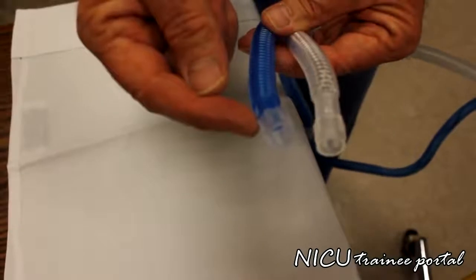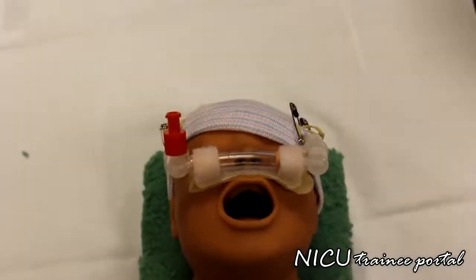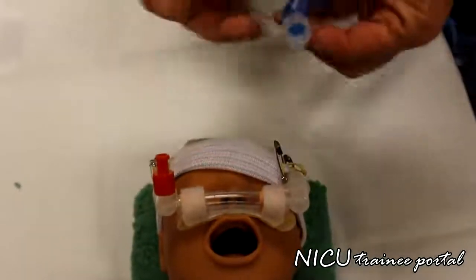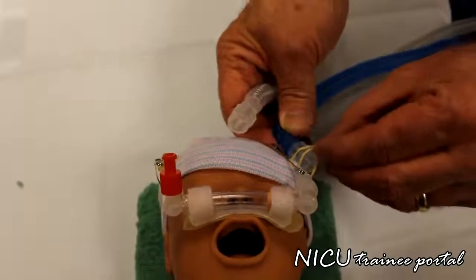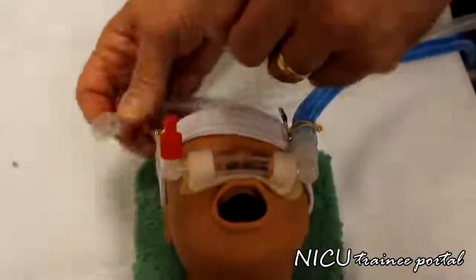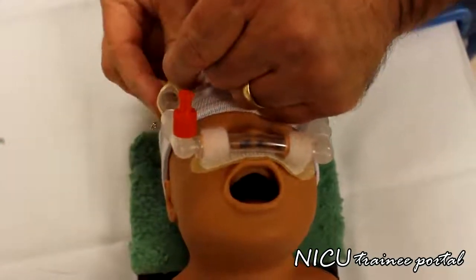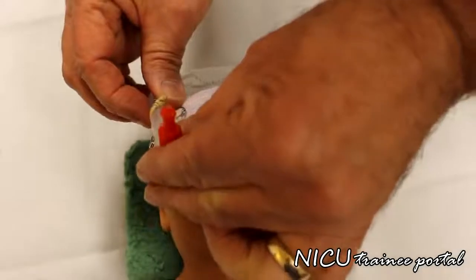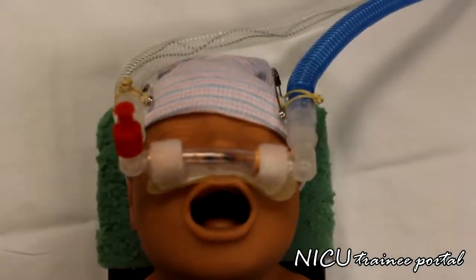It's the inspiratory side and it's the expiratory side. We put both ends in here. We're going to lift the rubber band up, slip through, connect it to the connector, and do the same on the other side. Doesn't matter which side goes on that, it's just a continuous flow through. And that's it.